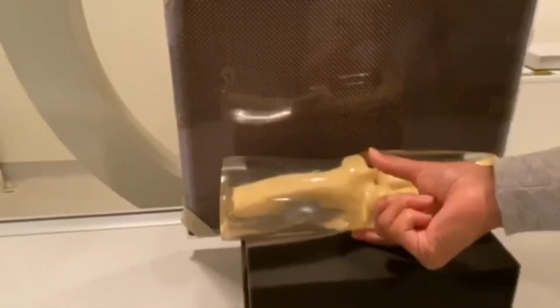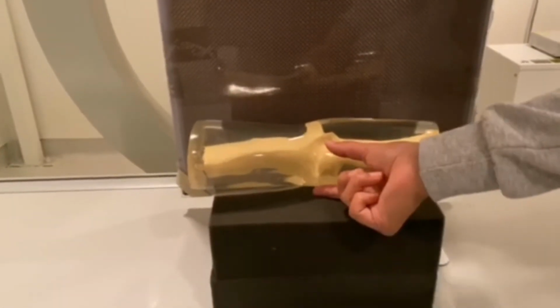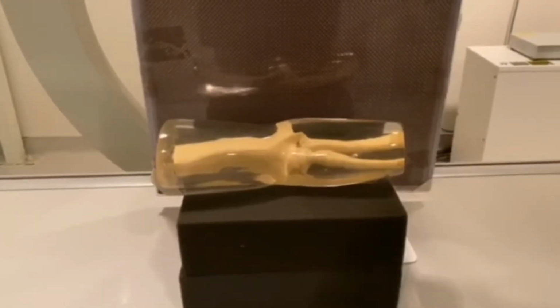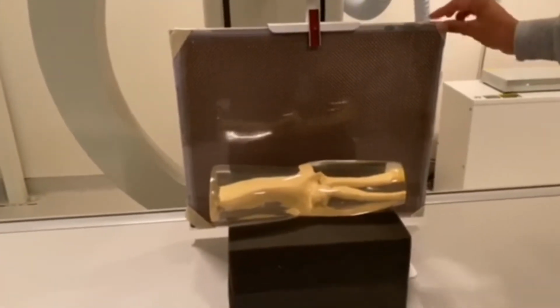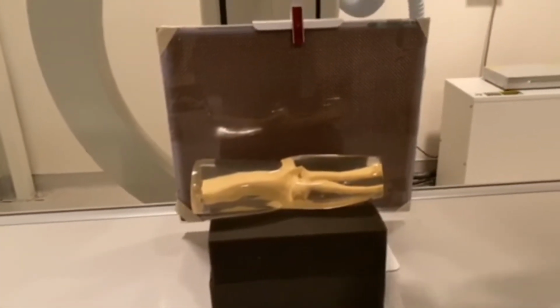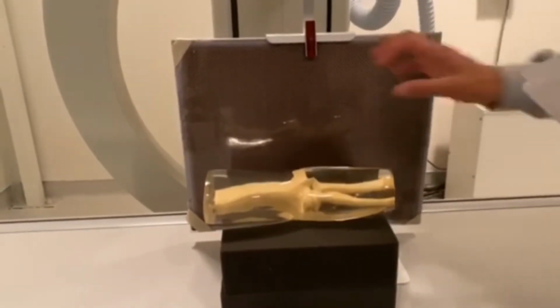You want to use the calipers to measure your part, and you're going to measure your part this way, top to bottom. You're not going to measure it lengthwise. You're going to record how many centimeters your part is onto your lab summary sheet. Once you have taken the exposure of your part, you will grab your IR, make sure you remove all of the tape from the IR, and then we're going to run it into the CR reader and see how much scatter came off of this part and hit our IR.